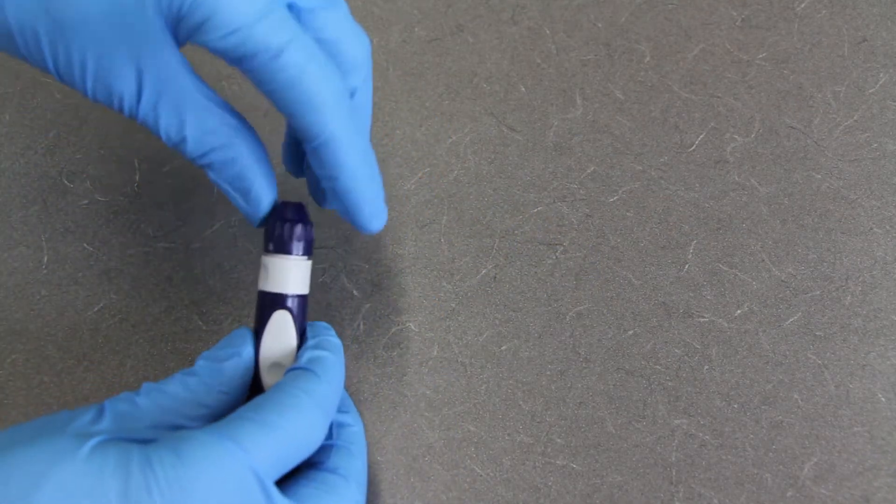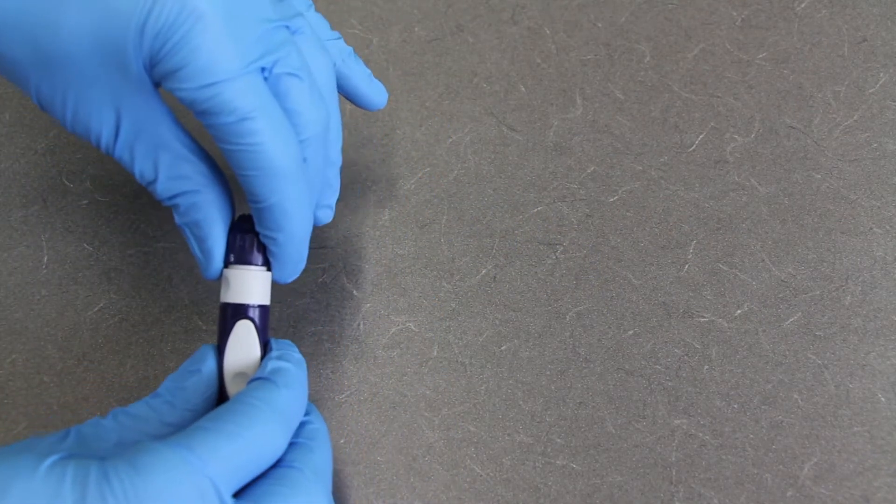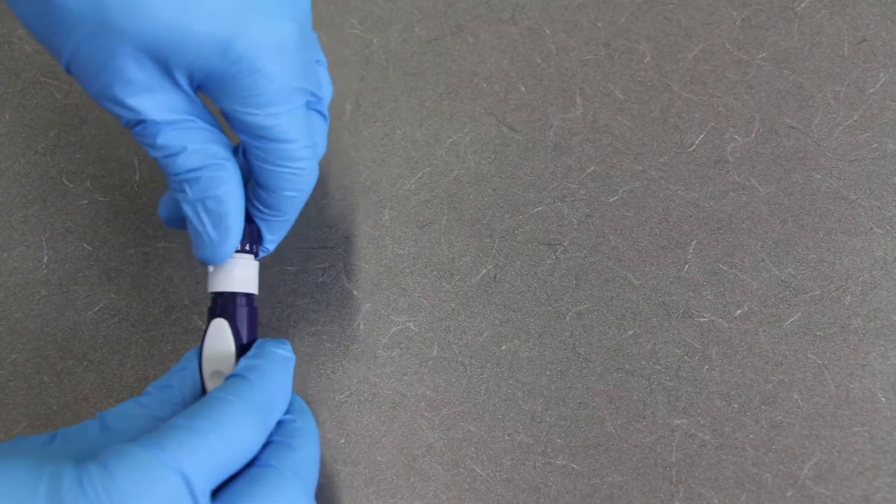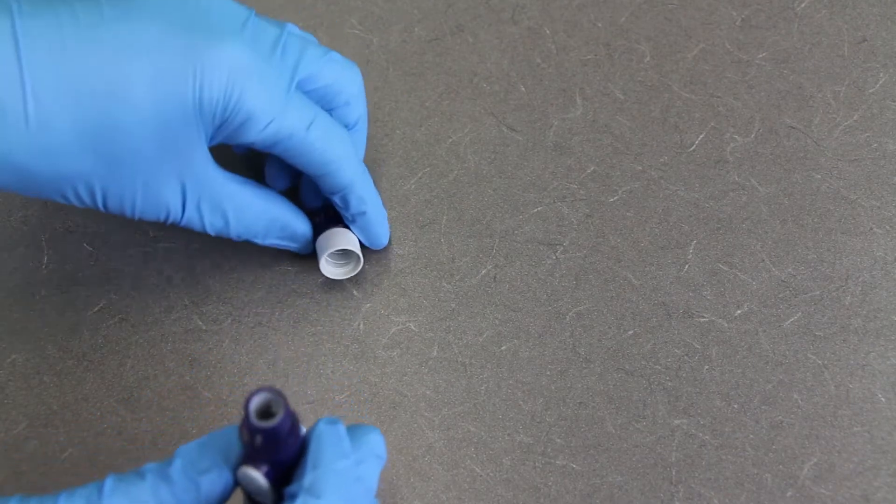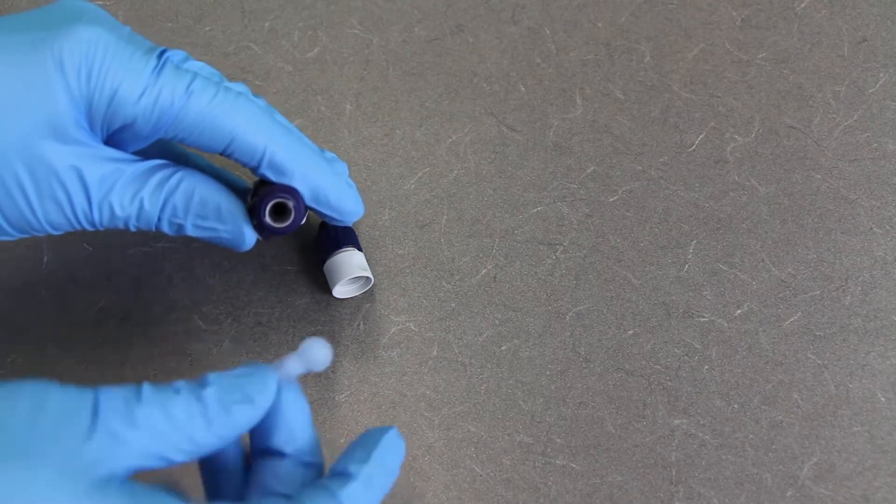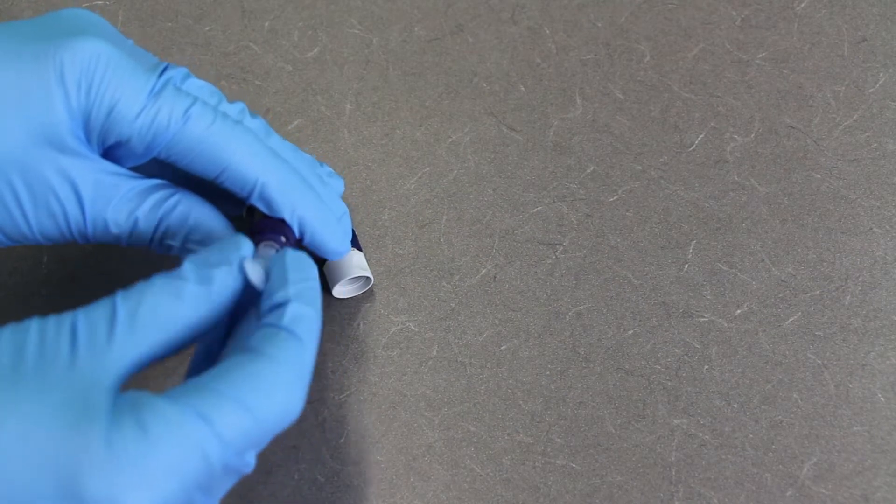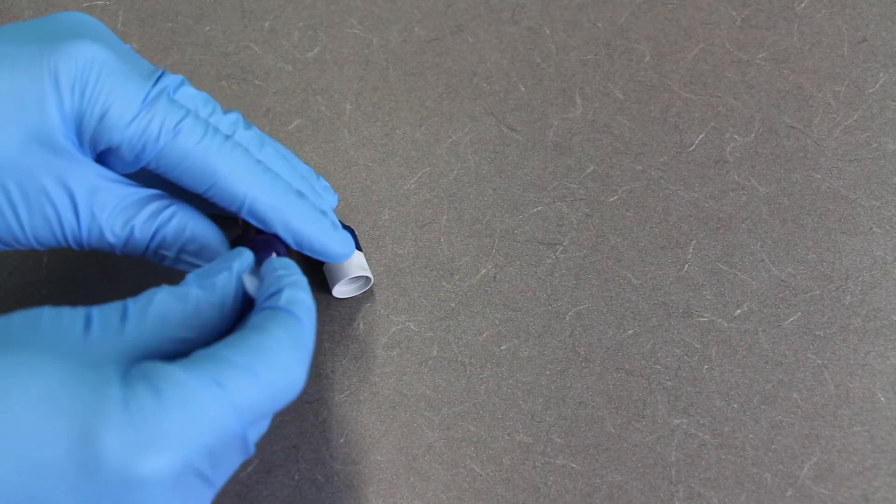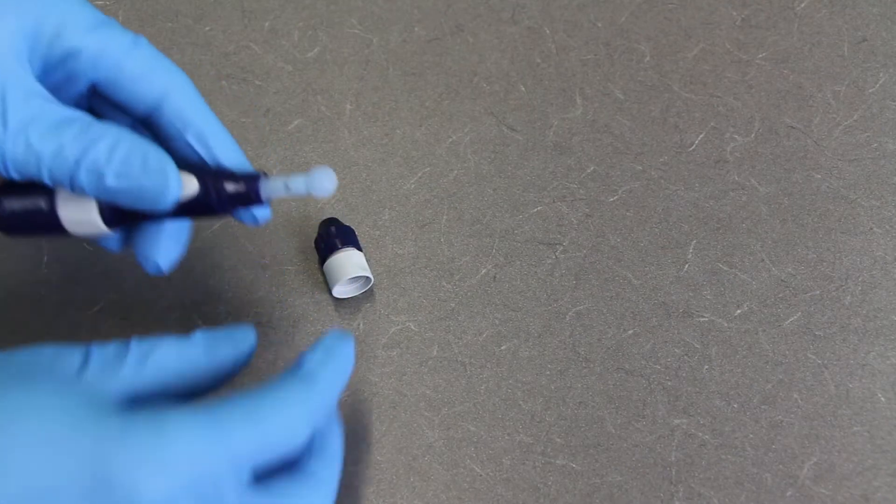Essentially here, what we're going to do is we're going to pull off the top or twist off the top, depending on the type of the gun. So that was a little bit of a twist off. And then we have this hole here where the lancet is going to go. So I'm just going to push the lancet in there firmly. And it just gives a little bit of resistance. It fits in there nice and snug.